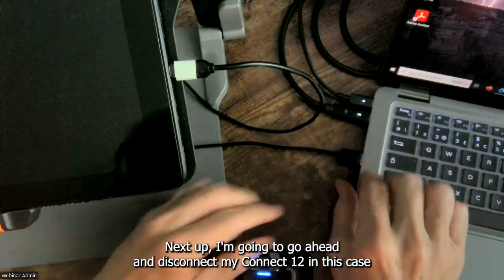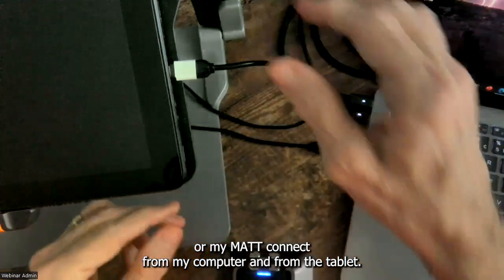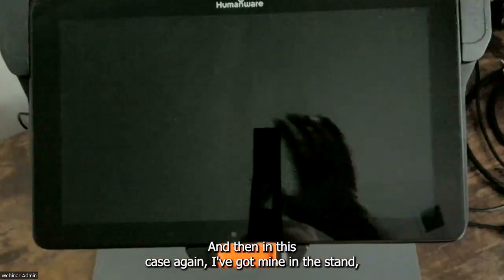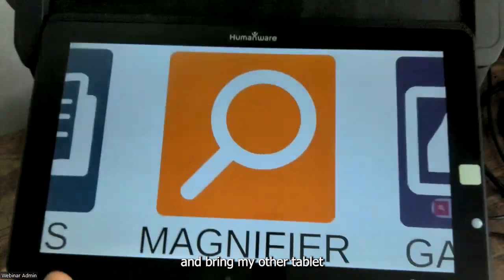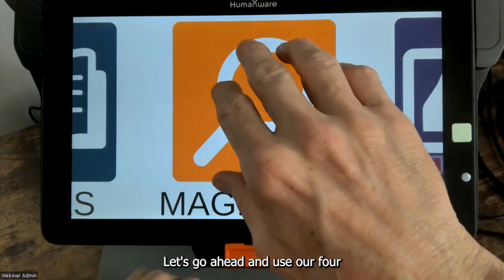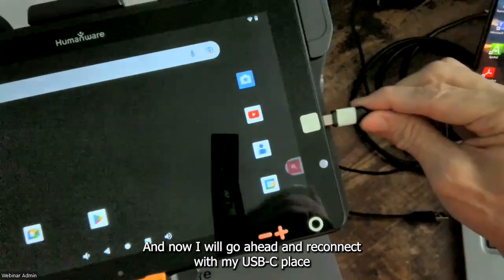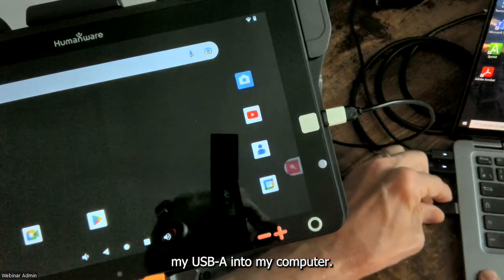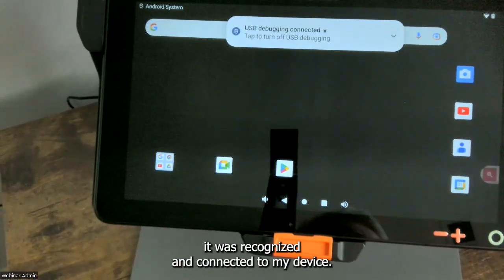Next I'm going to go ahead and disconnect my Connect 12 — or my MatConnect — from my computer and from the tablet. Then I'll remove my tablet from the stand, set that one aside, bring my other tablet and place it into the stand. I'll use a four or five finger press to get out to the Android world, and then reconnect with my USB-C cable and place the USB-A end into my computer. It was recognized and connected to my device.